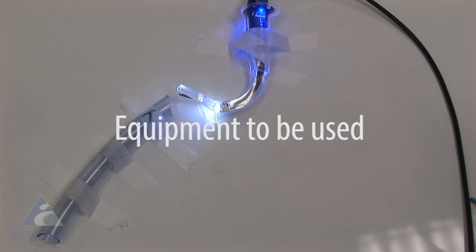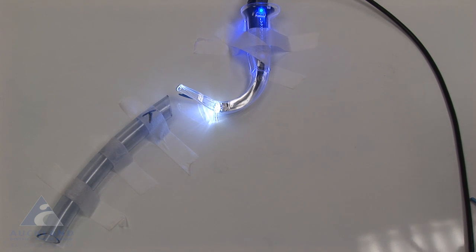I now wish to go over some of the elements of the equipment that you will need to solve this particular problem.